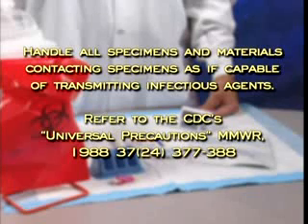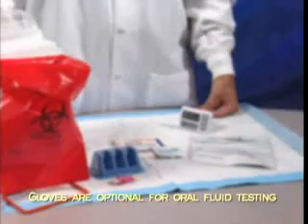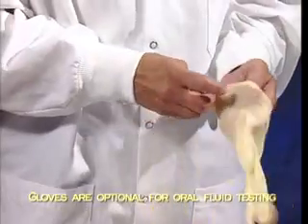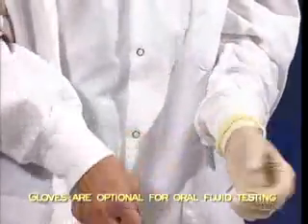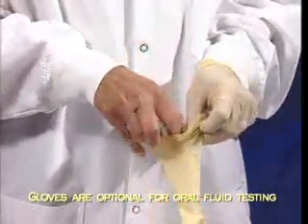Make sure you have received training on how to safely handle potentially infectious blood and body fluids before performing the finger stick or venipuncture collection procedure on a patient. Oral fluid is not necessarily potentially infectious unless it contains blood. Use of gloves for oral fluid is optional. Test administrators with breaks in the skin, cuts, abrasions, or dermatitis should wear gloves when performing oral fluid testing.